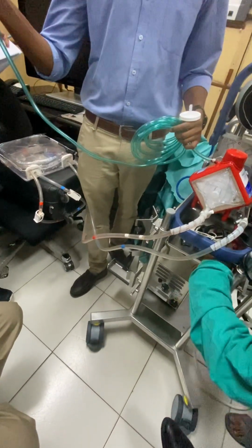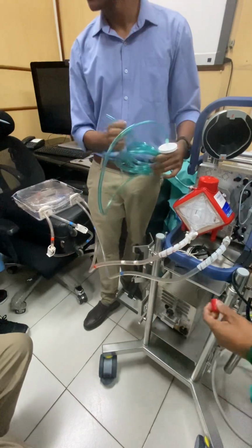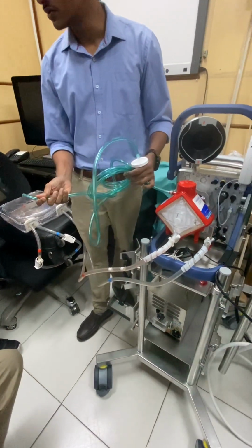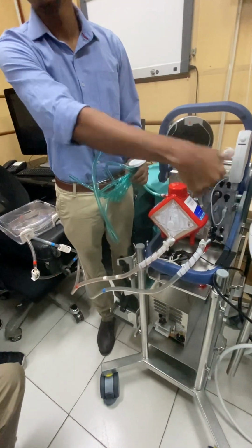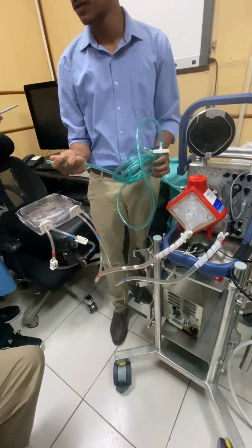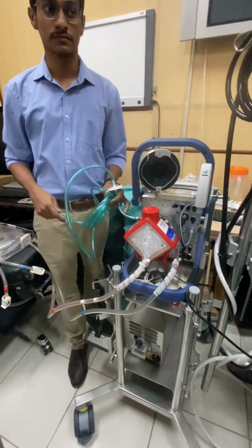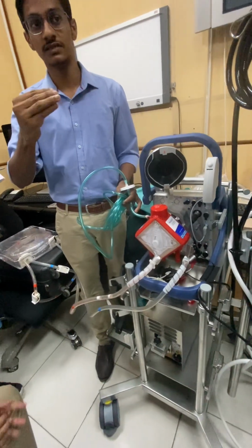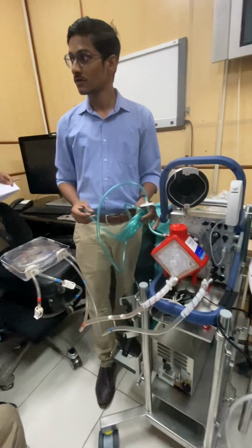Got it. One end will be connected here. We fix the other end, and a vacuum is formed. The other end will be connected if you are not having a central supply. For example, if you are transporting or going somewhere, in such a situation you can use a cylinder. If it is only oxygen, then we cannot adjust. You can only adjust with the oxygen knob in the cylinder.